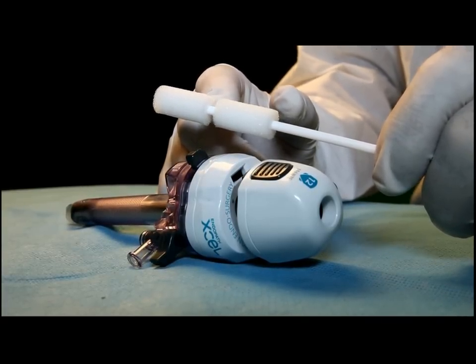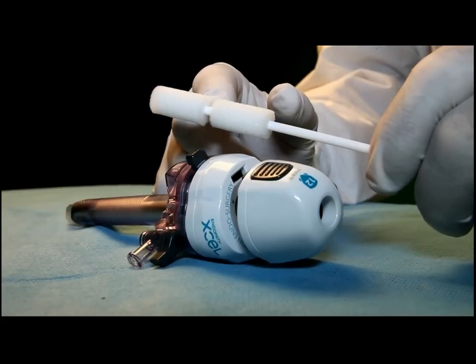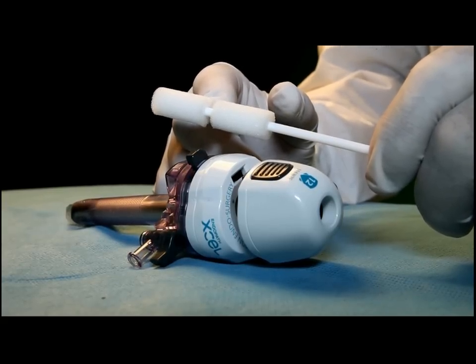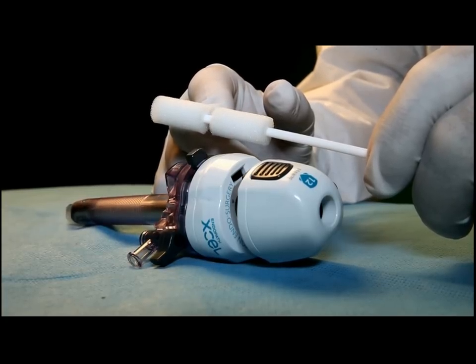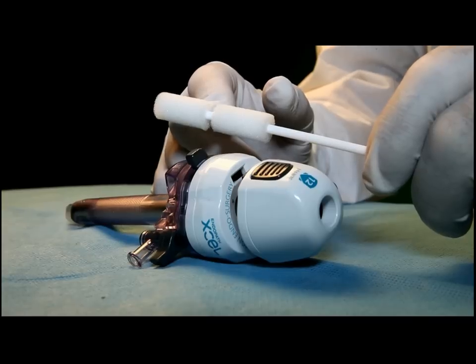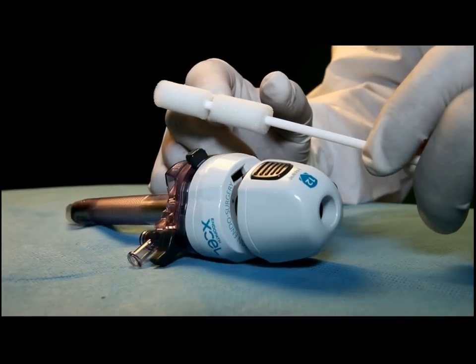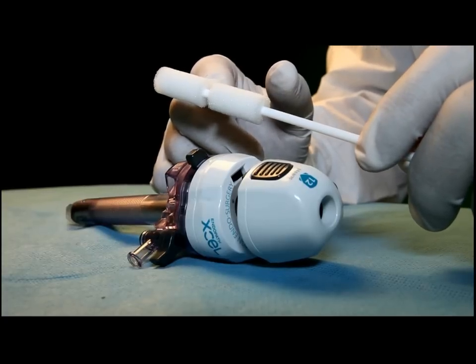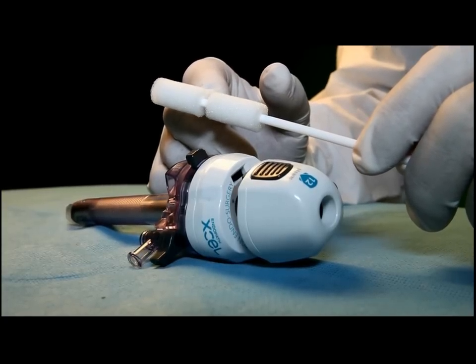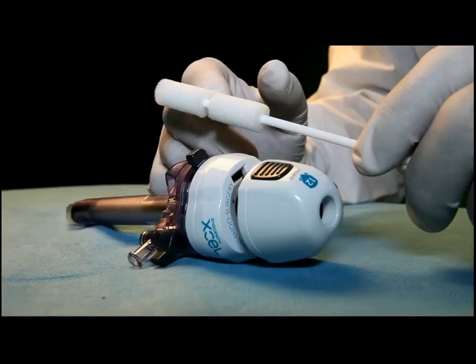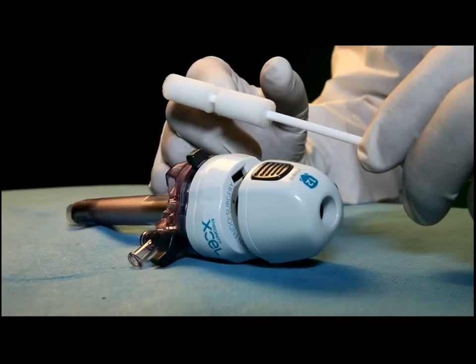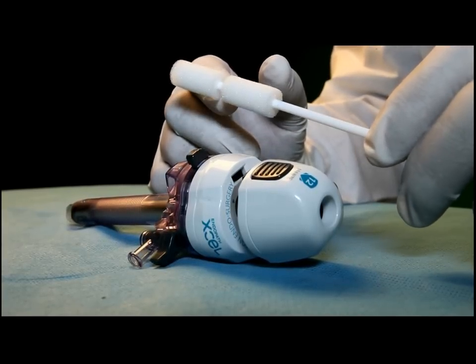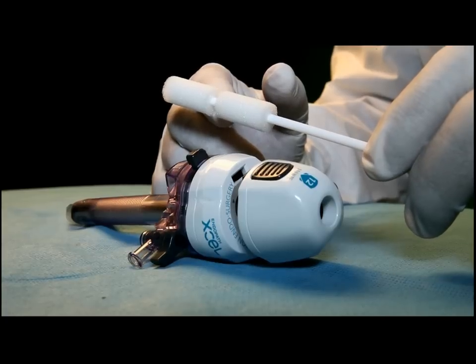The product is designed to clean the port while removing the camera and before inserting it again. You clean the port with the DELV, which I'll demonstrate in a few seconds, eliminating the frustration of the camera being dirty again when the surgeon inserts it back into the port.